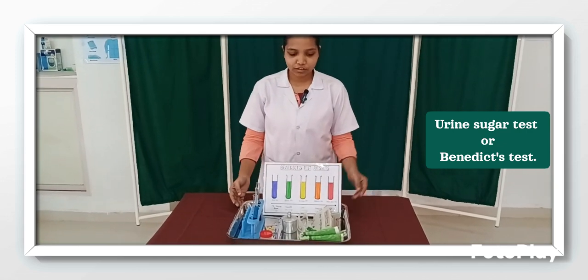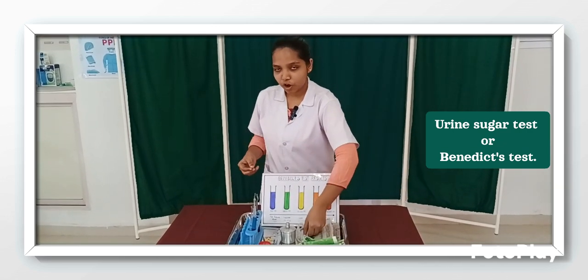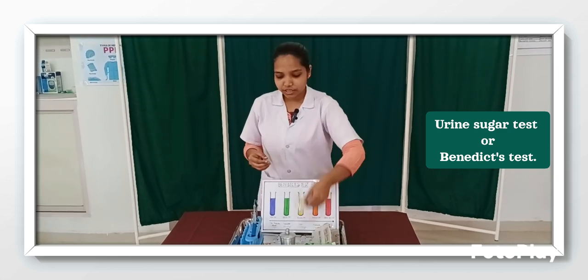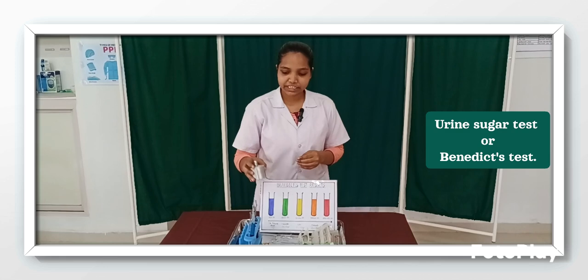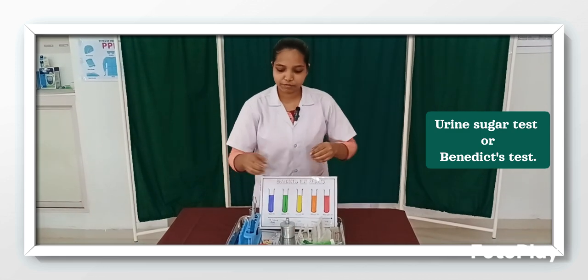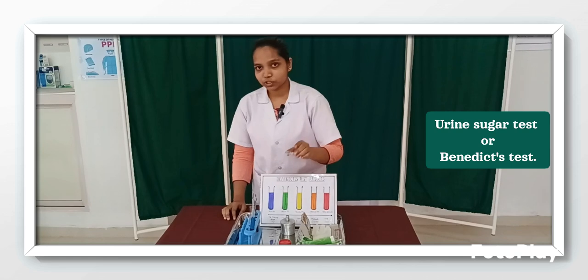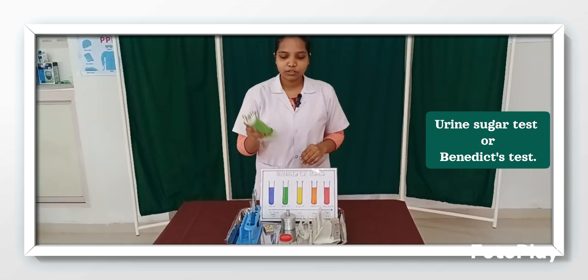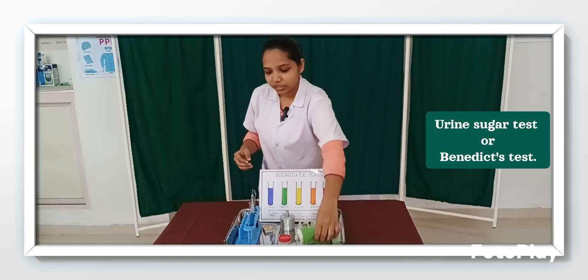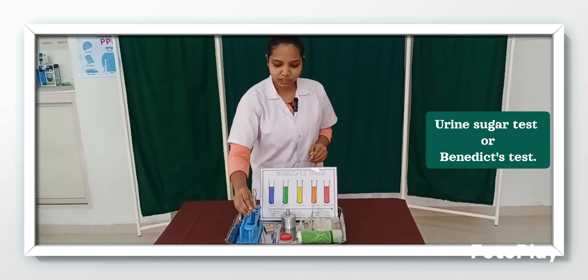A clean tray contains one pair of gloves to protect our hands and one goggles to protect our eyes. Then we have a spirit lamp to heat the test tube. Then we have a specimen of urine. Then a matchbox to light the lamp. Then one towel to wipe the spillage, then test tube to heat the solution and urine.